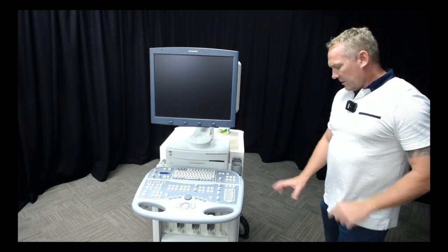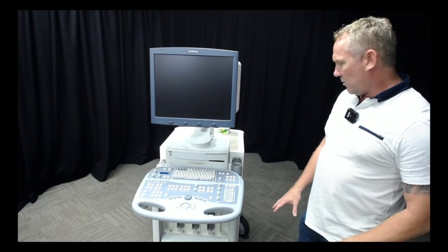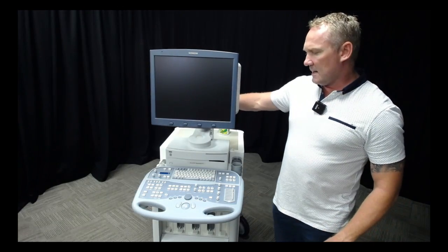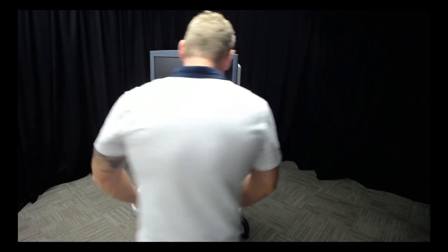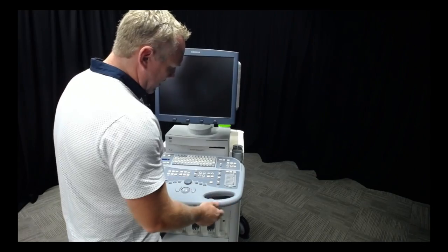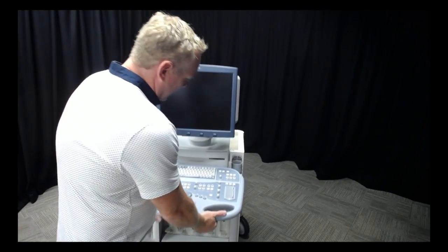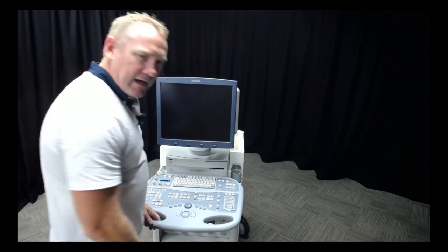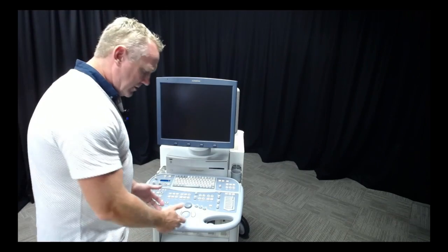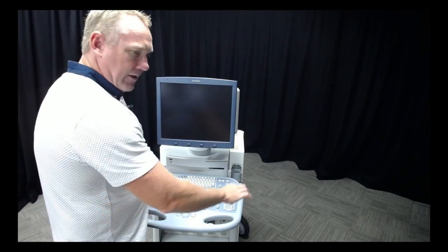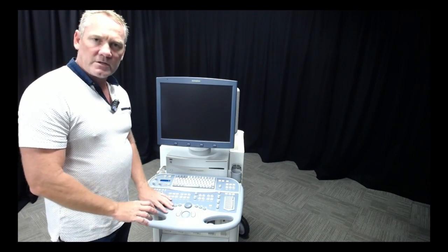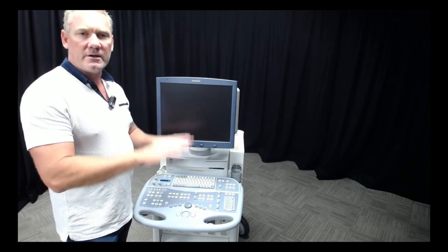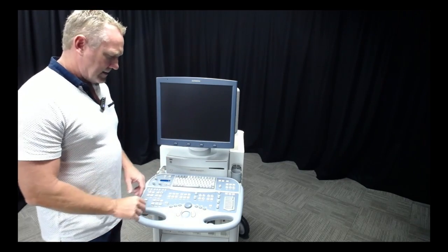I'm going to get the wheels looked at and try to get this arm adjusted. I'm happy that the console goes all the way up nice and high and locks into place, and goes down nice and low. If this was a more modern machine it would have other degrees of motion, but this older machine only goes up and down.